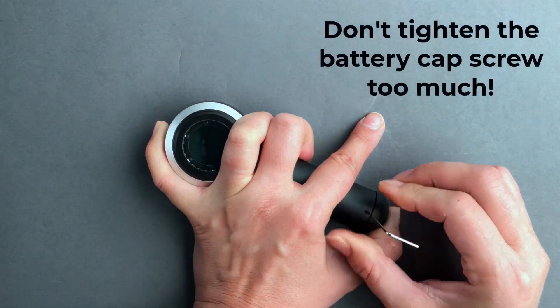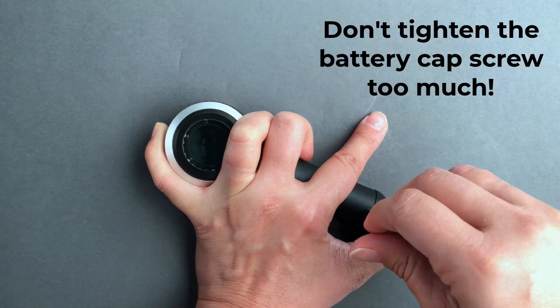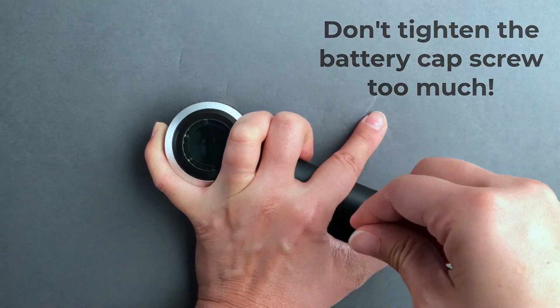Keep in mind that this set screw does not need to be overly tight. If you tighten it too much, you risk stripping the threads.